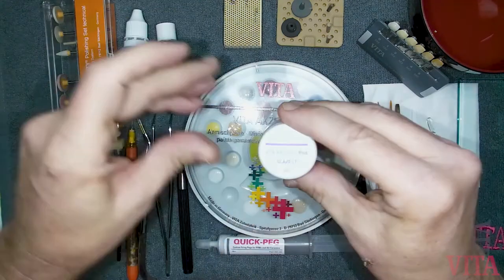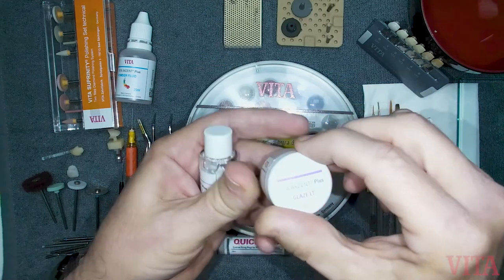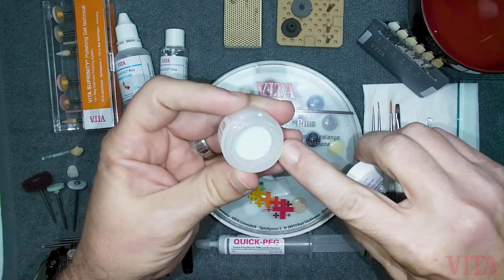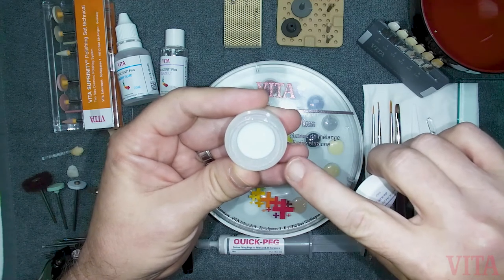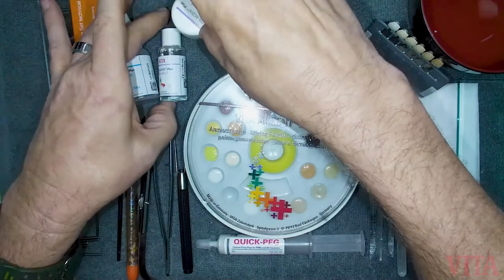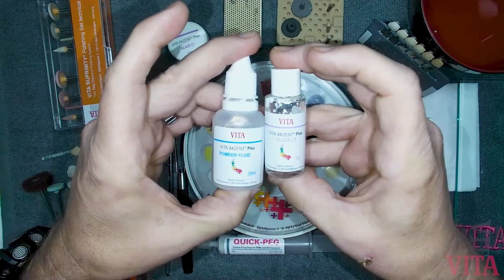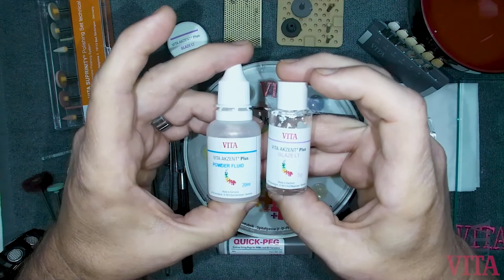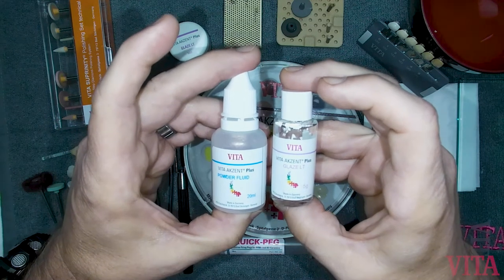You'll need to decide whether to use a paste or powder formula for your glaze material and color stains. With a paste, it is pre-measured and placed inside a tub by the manufacturer — in this case Vita's low-temperature glaze, suitable for most all-ceramic restorations and zirconia. Mix it with an instrument for about 60 seconds prior to use. If the consistency isn't what you're looking for, you can switch to a powder-liquid format, which lets you decide on the thickness or thinness of your glaze. There's no right or wrong consistency as long as the result is to your liking.